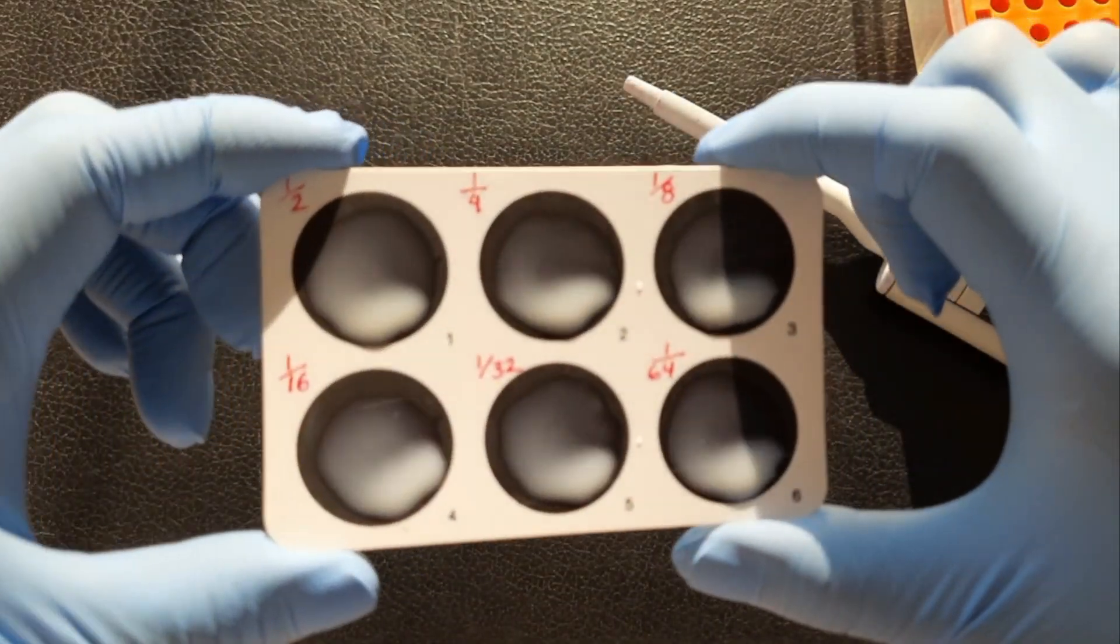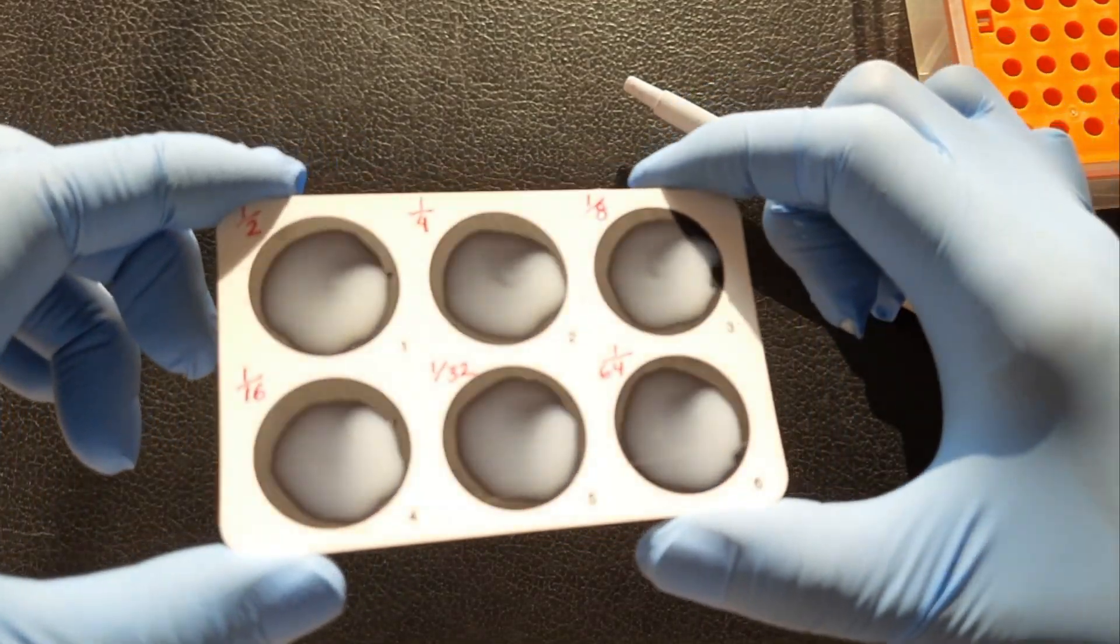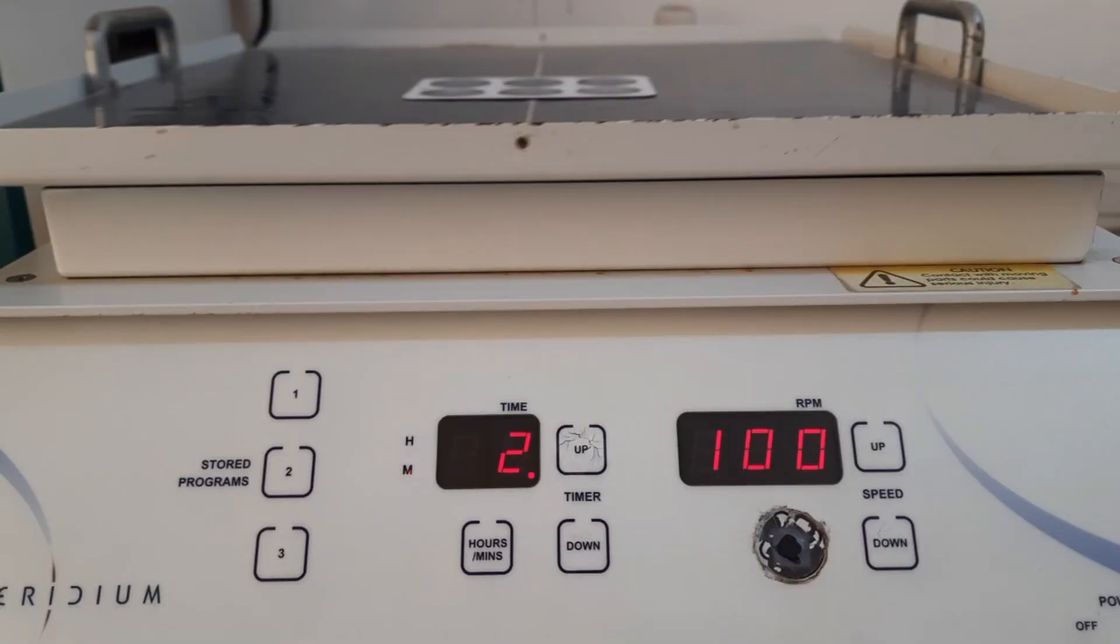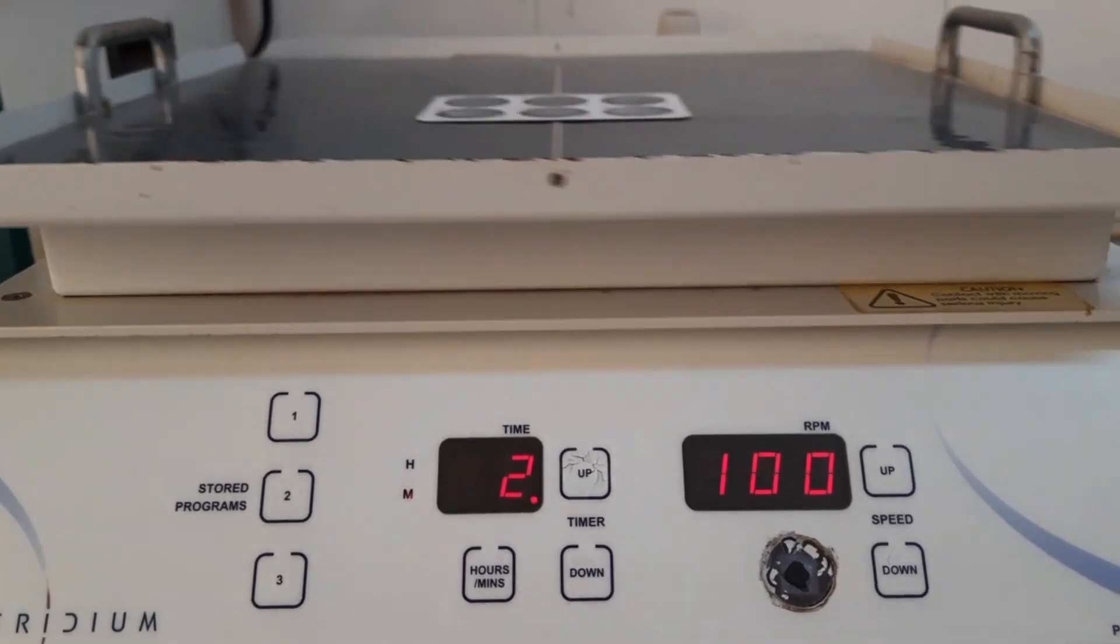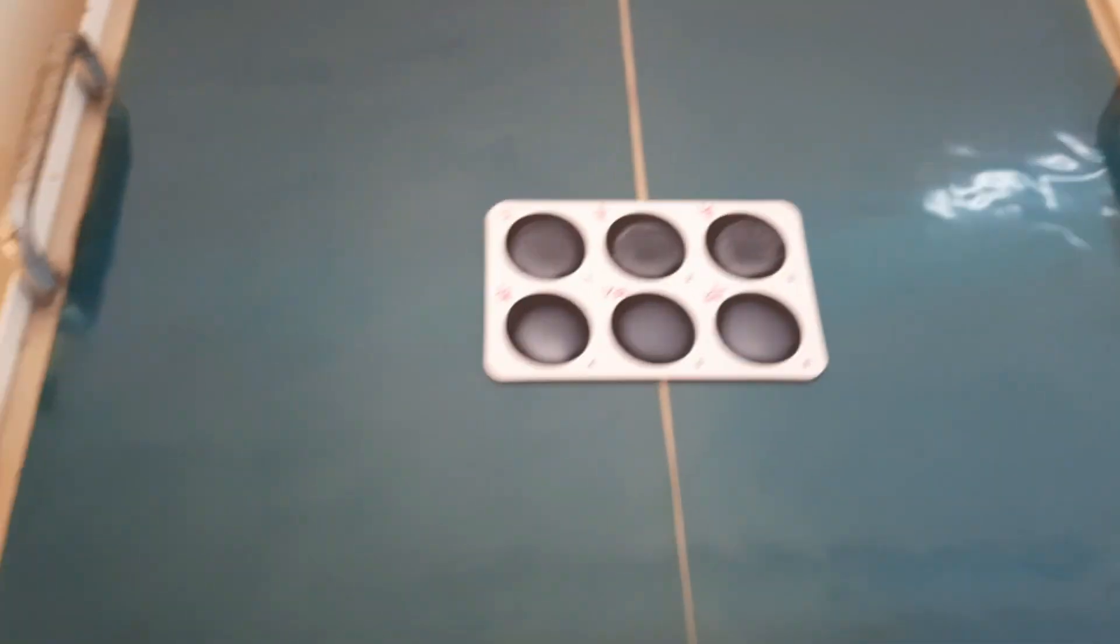Rock the slide back and forth like this, or place the test card on mechanical rotator at 100 RPM for 2 minutes to let the reaction be processed.